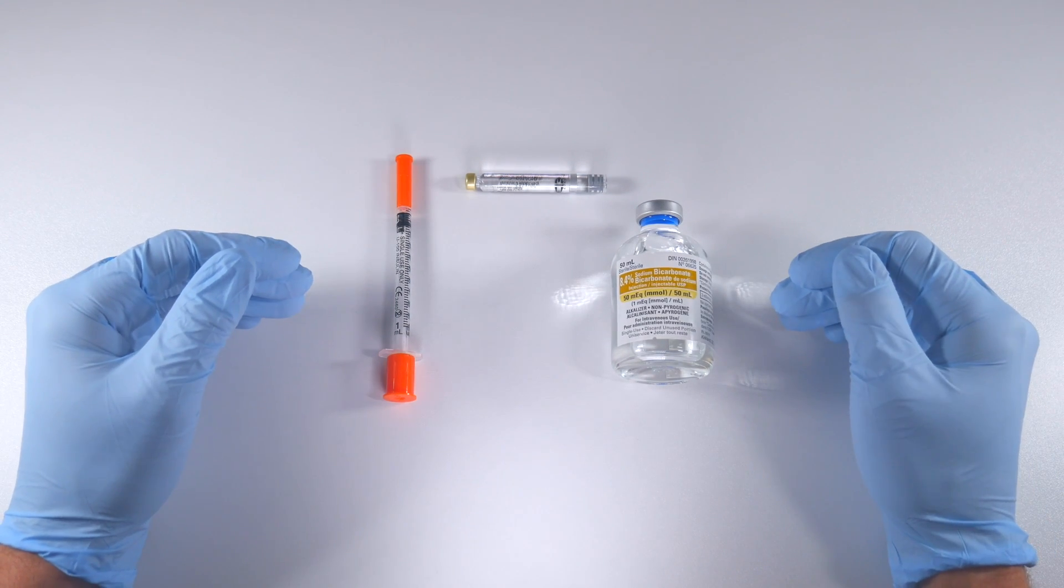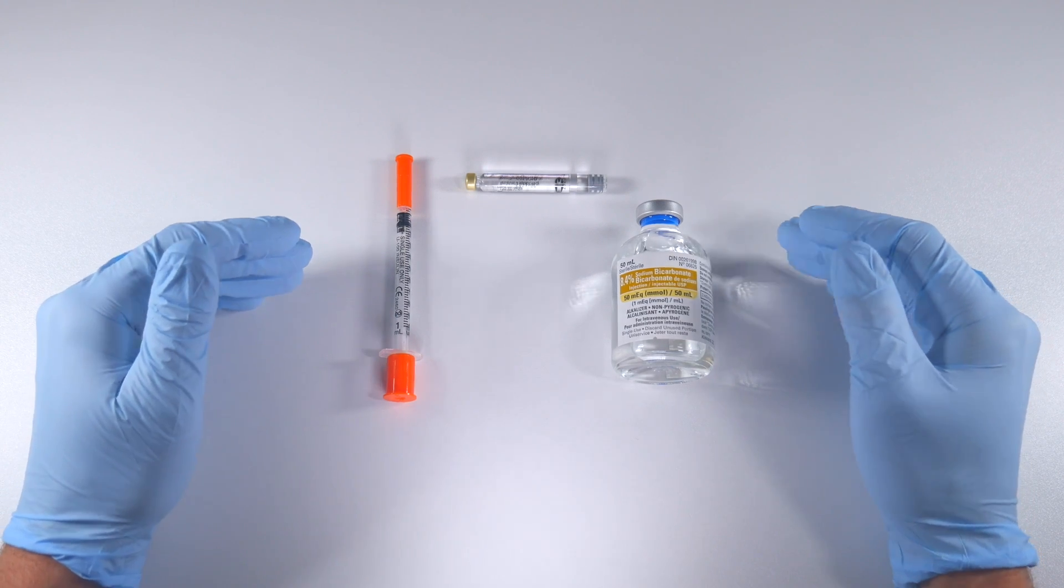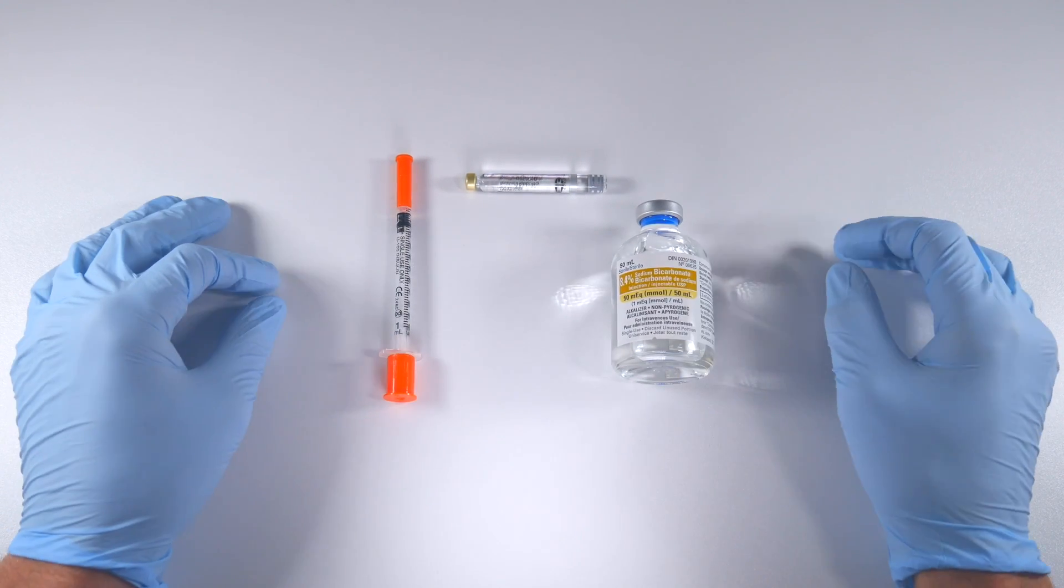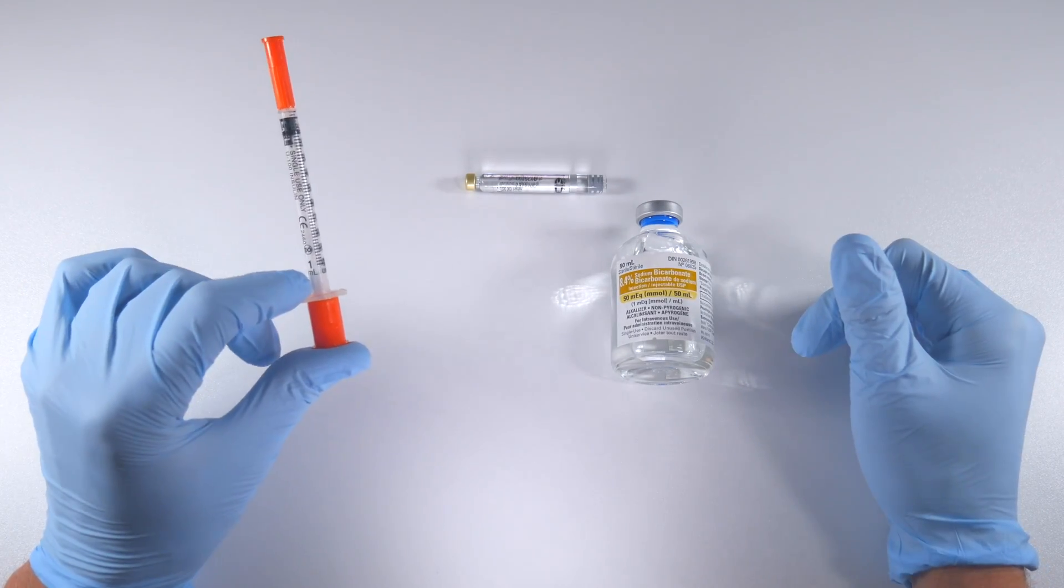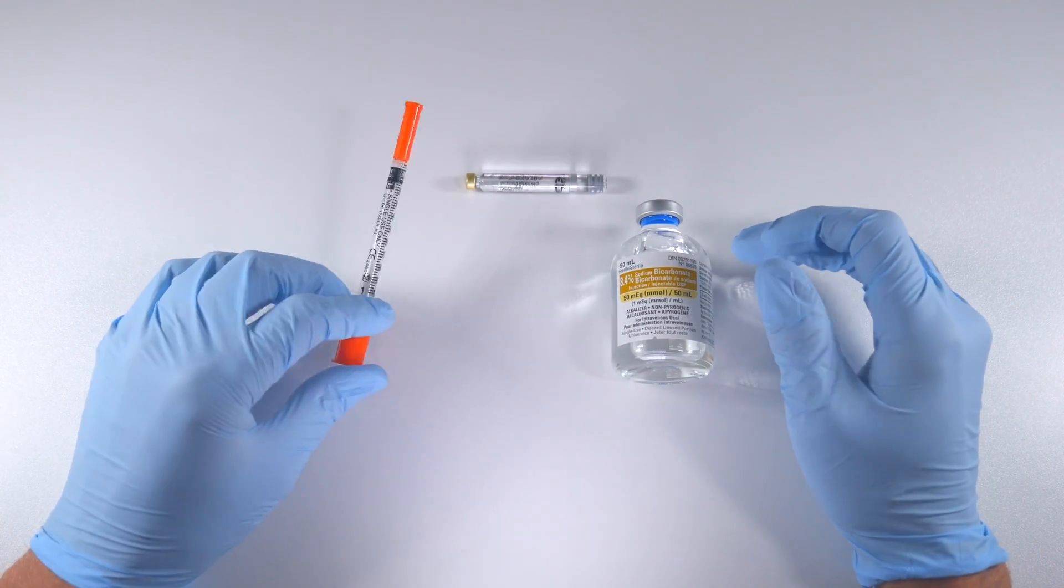Together they have worked on basically making a way for dentists to do this very simply, and I'm going to demonstrate that to you in this video. Again, we've got our 1ml syringe, we've got our sodium bicarbonate.